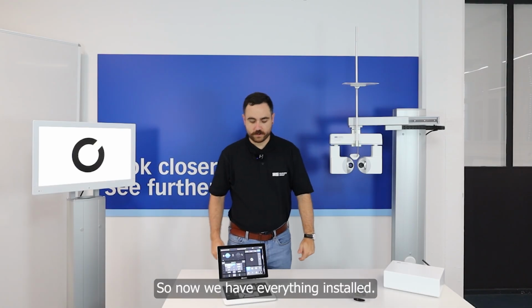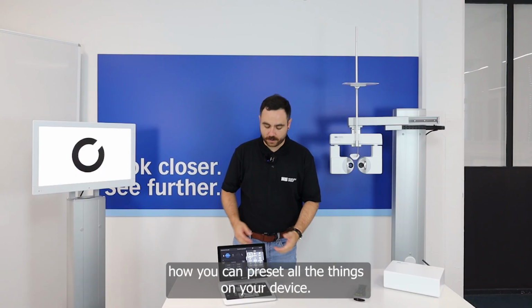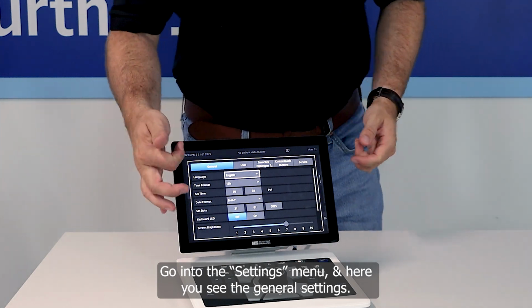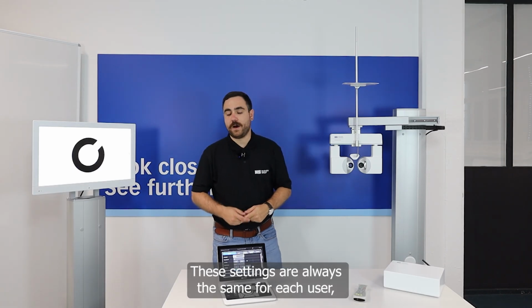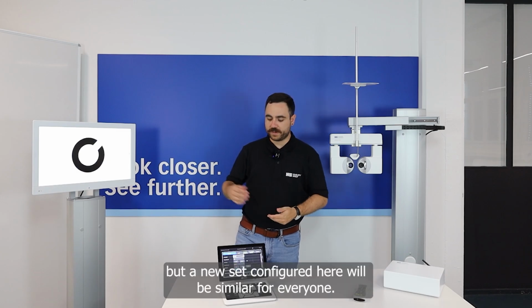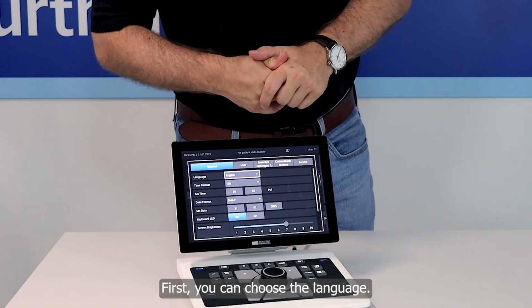So now we have installed everything, and I will show you, as an end customer, how you can preset all the things in your device. Go into the settings menu, and here you see the general settings. These settings are always the same for each user. You can have up to 4 users, but each setting you set here will be similar for everyone. First of all, you can choose the language.